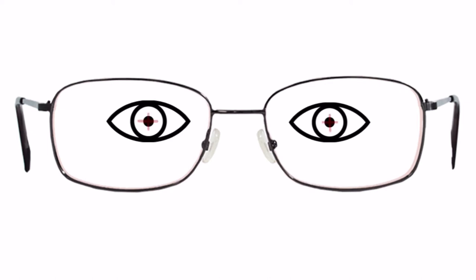For this example, we are going to mark the pupil center as the fitting point. This isn't always the case, because the fitting point depends on the lens style and purpose, but for this example, we are going to fit the lens at the pupil center.